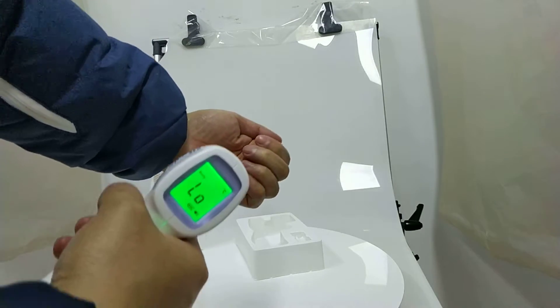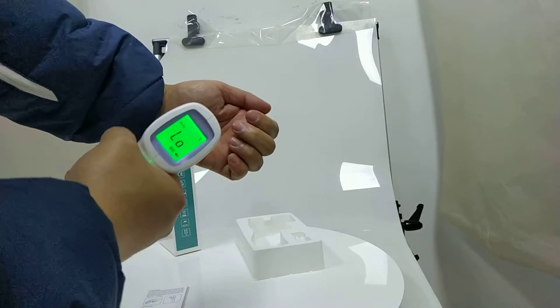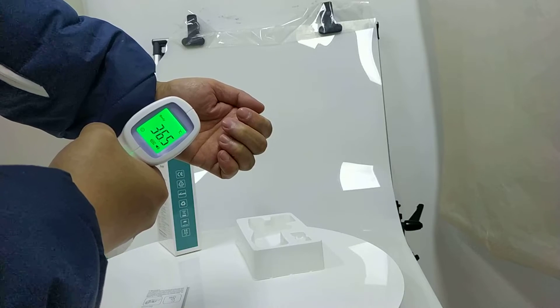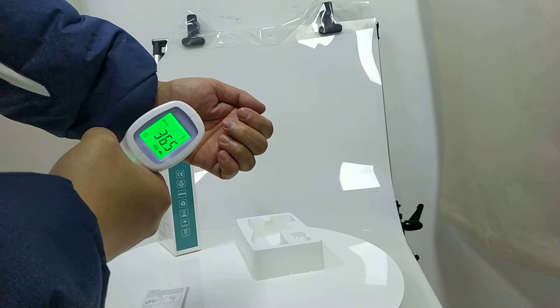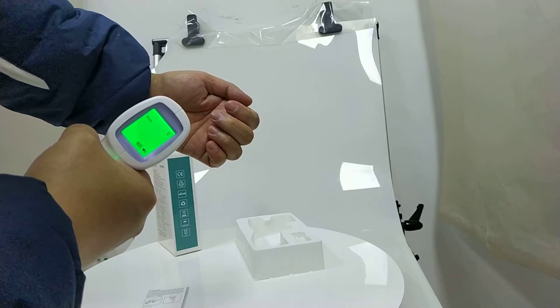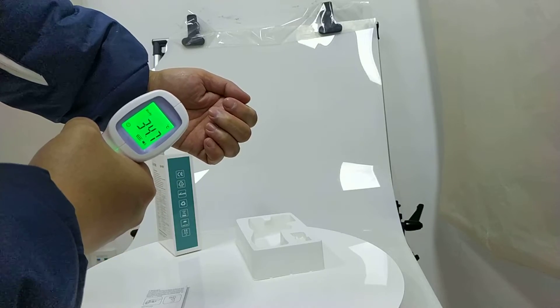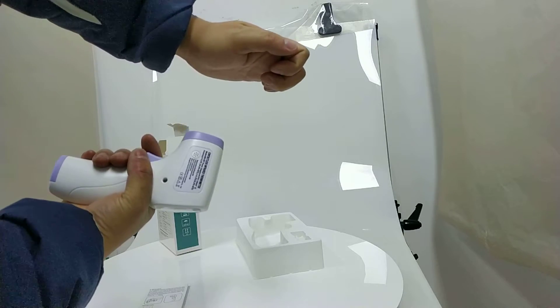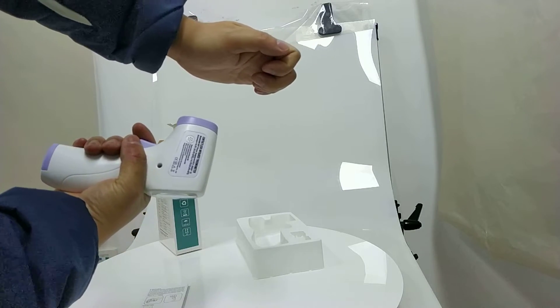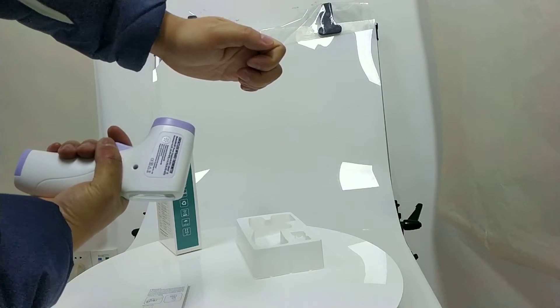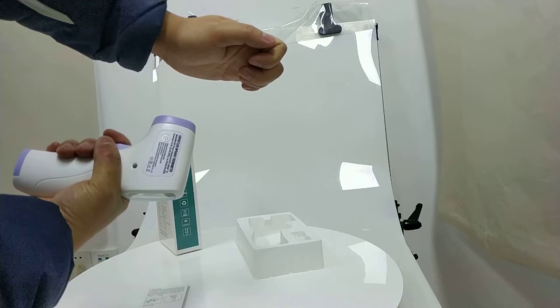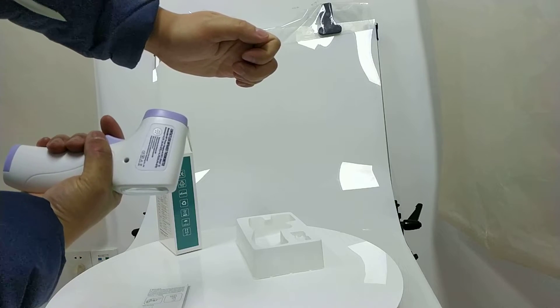Let's measure here. I'm normal. And here, you can see the distance. About 8 or 10 cm.